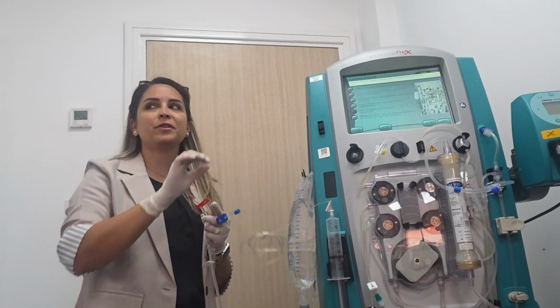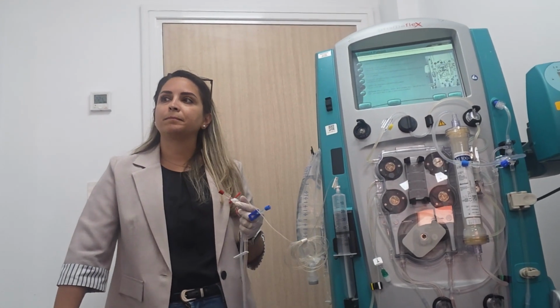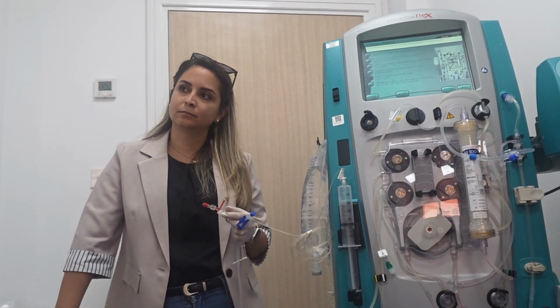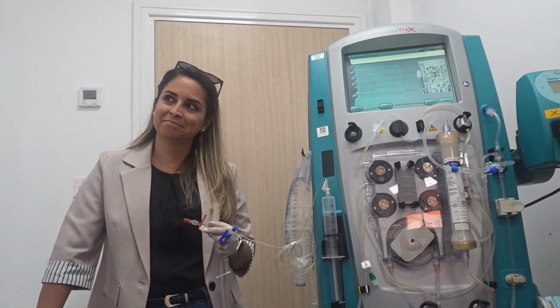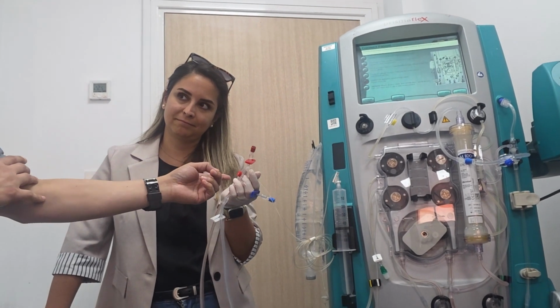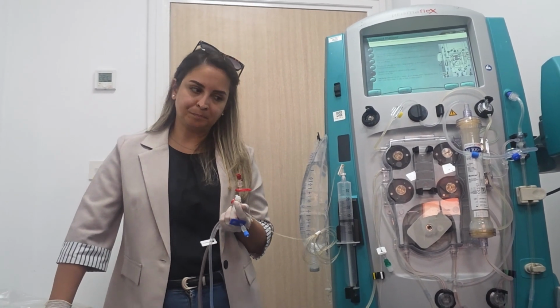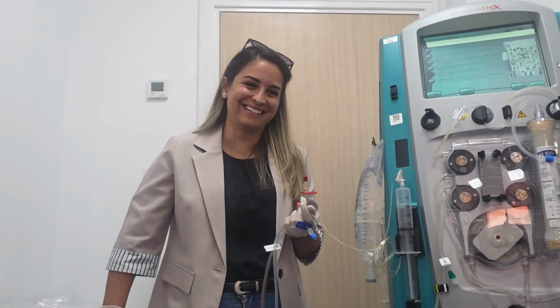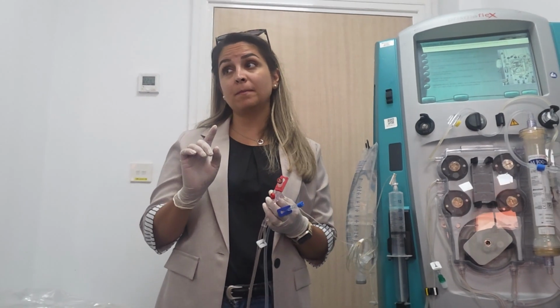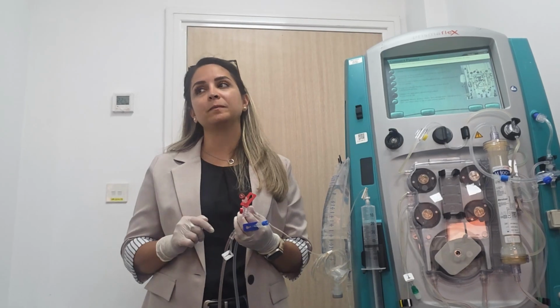Because sometimes what is happening here is that they are actually running CRRT with patients having no central line and no arterial line. So we are left with an option of getting the patient sample on this port. Okay, in that case, Rajesh has a suggestion. I'm thinking about holding the machine. Stop, so all the pumps will be stopped, so no infusion of citrate. And then he will take the sample, and then he will resume directly. That's okay.